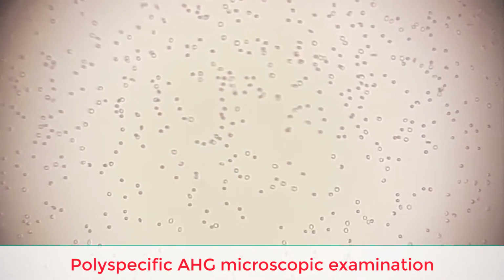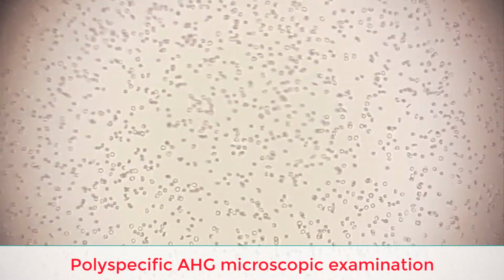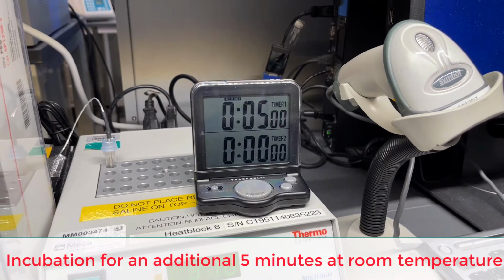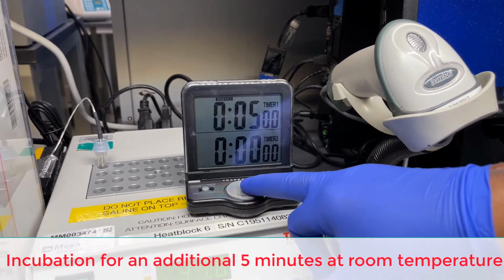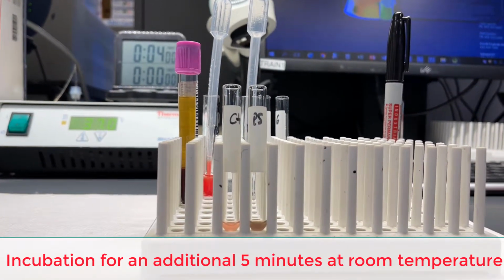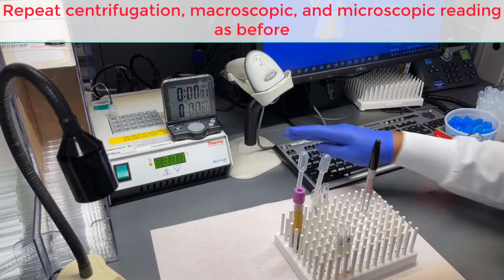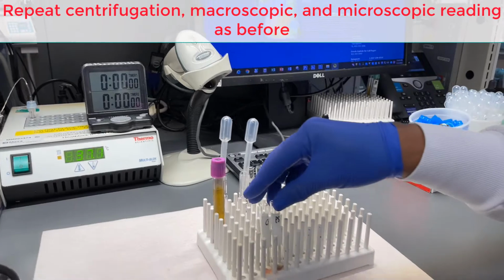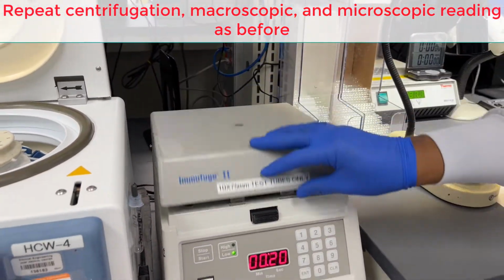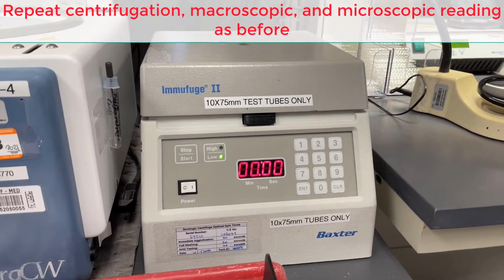For this demonstration, the patient's initial DAT results are negative for both the control and polyspecific tubes. The next step is to incubate both tubes for 5 minutes at room temperature. The tubes are centrifuged, and starting with the control tube is read both macroscopically and microscopically where no agglutination should be seen. The polyspecific tube is read macroscopically, and if non-reactive, is read under the scope.